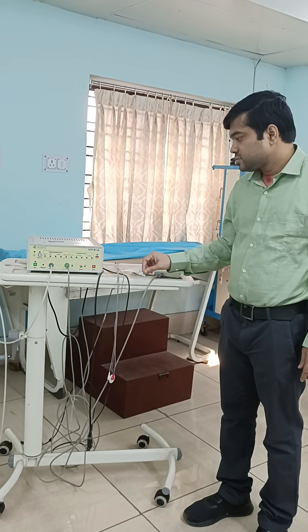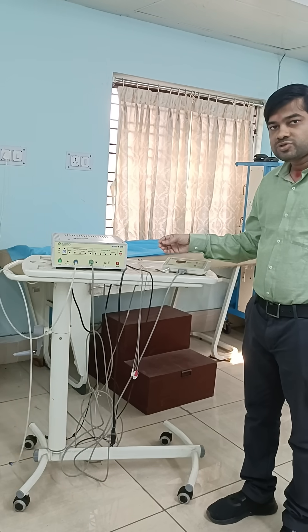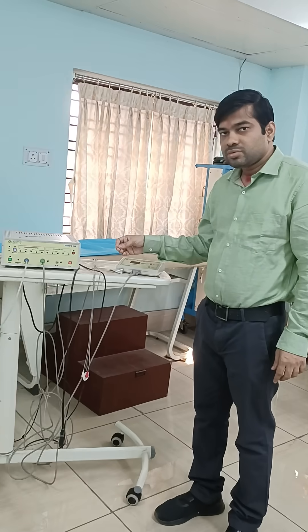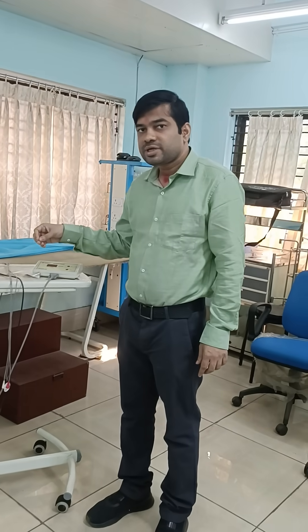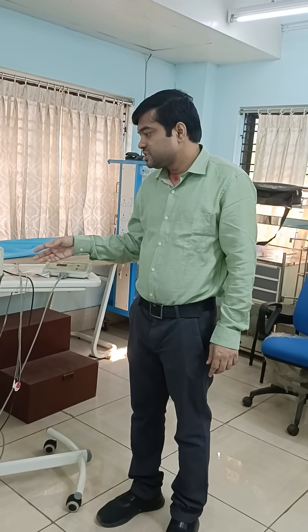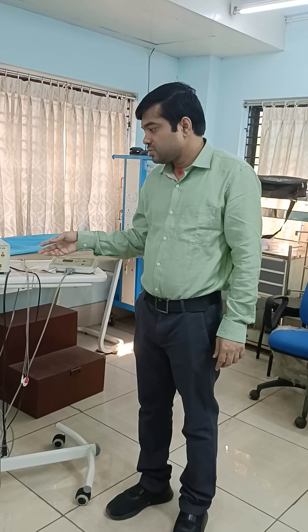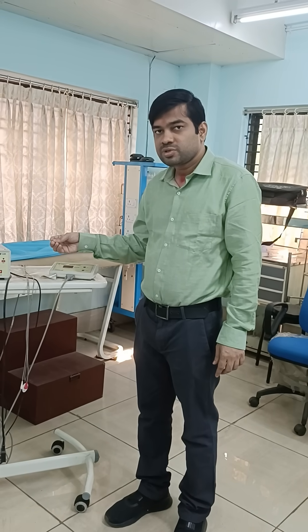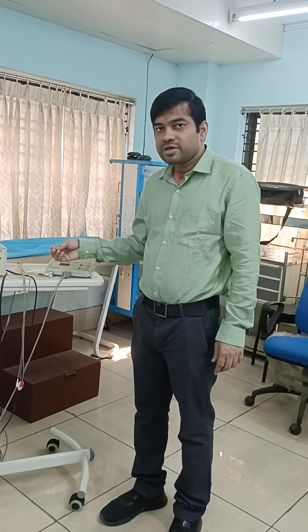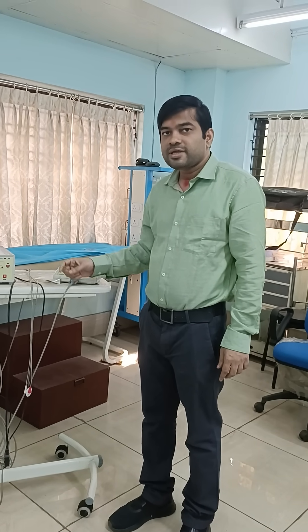We can use this machine for the diagnosis of cardiac autonomic neuropathy — that is diabetic neuropathy — and other diseases. In case of diabetes and in case of neuropathy patients, we can use this machine. We will learn details about this machine in further sessions. Thank you very much.